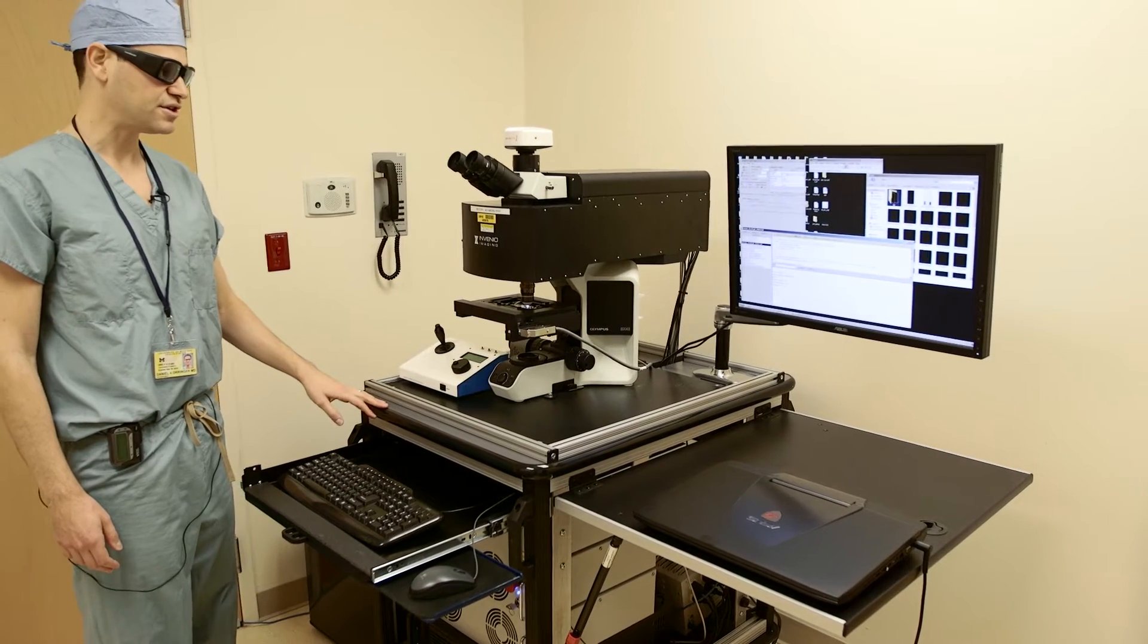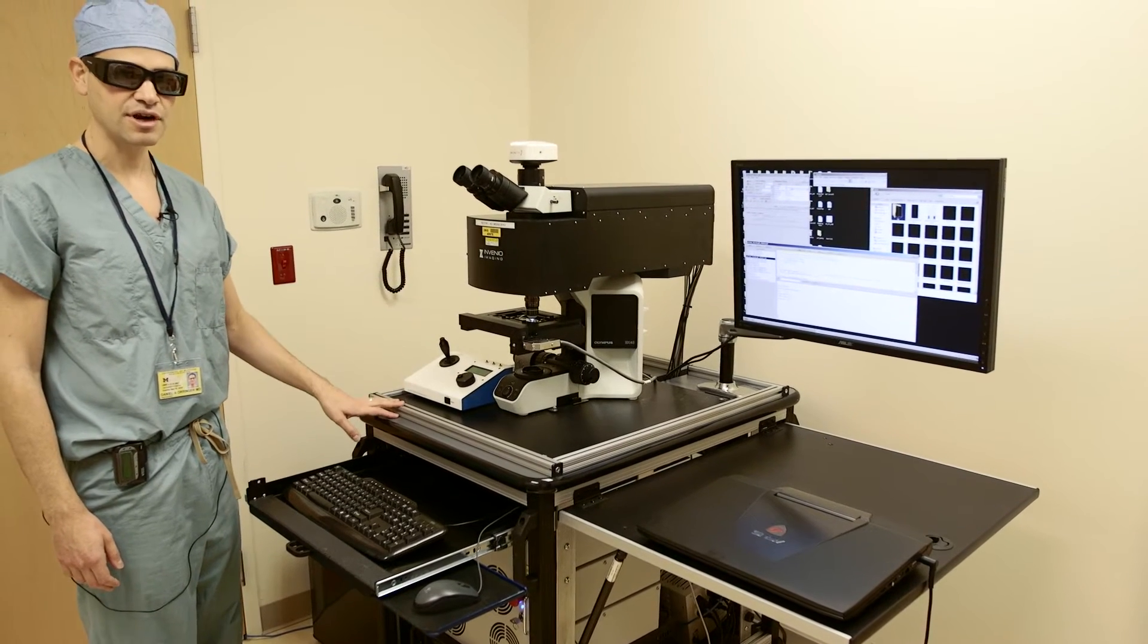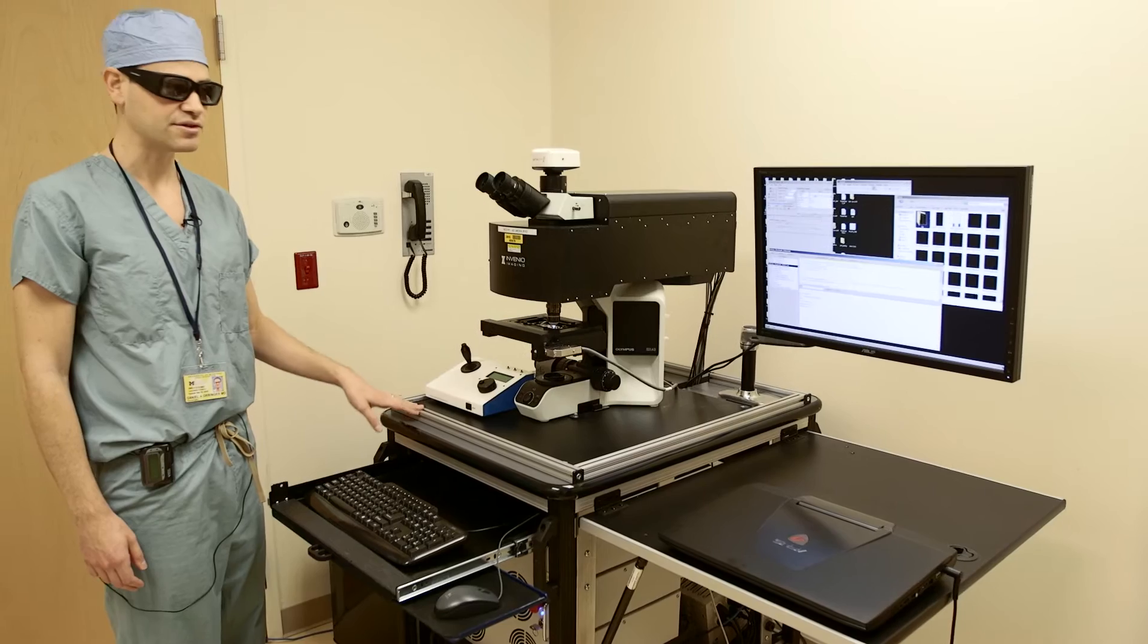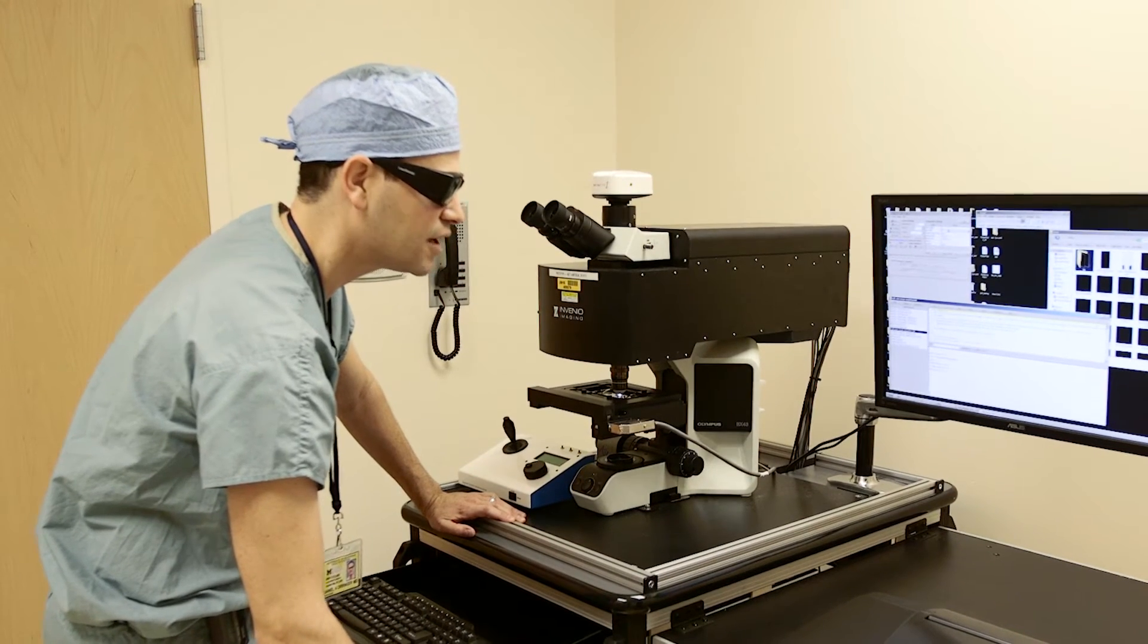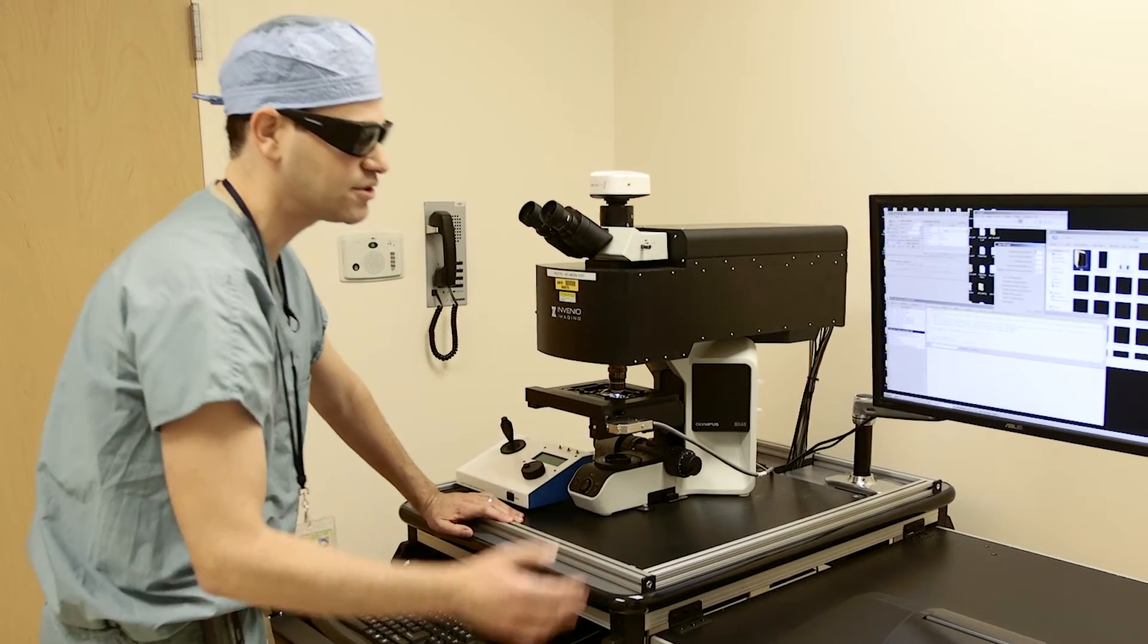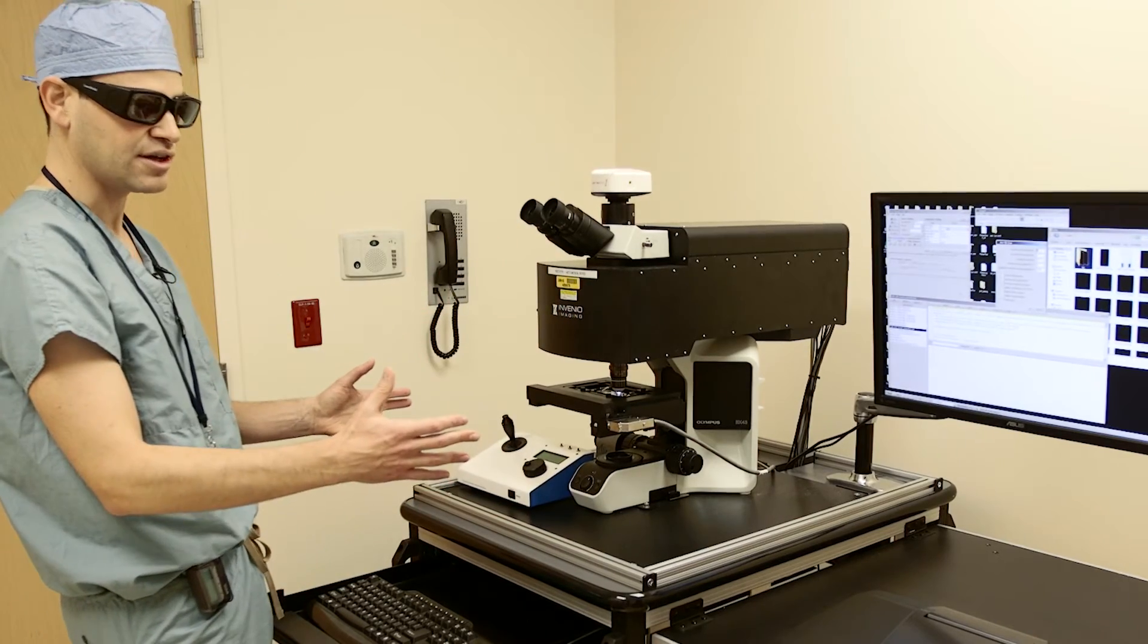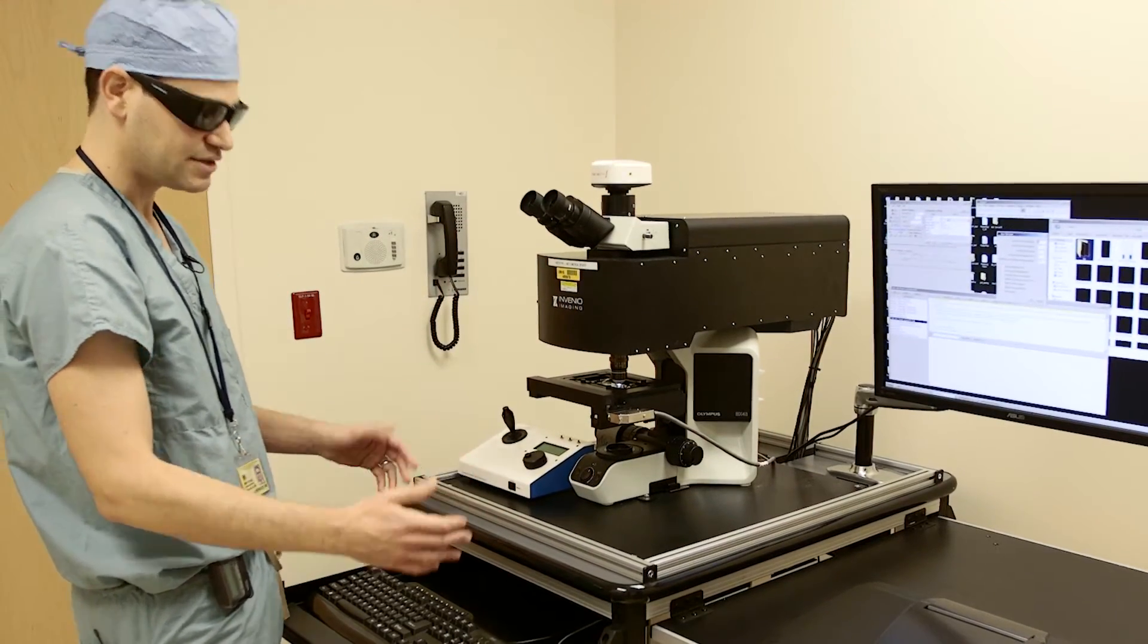I've set things up here so that we have a brain tumor sample loaded onto our microscope and essentially what I do is tell the microscope that I'd like to acquire a mosaic tile of the tissue specimen and within seconds we start to get images from this microscope.